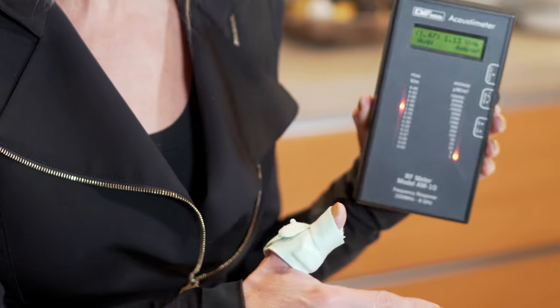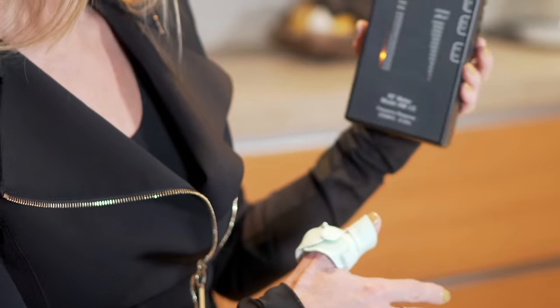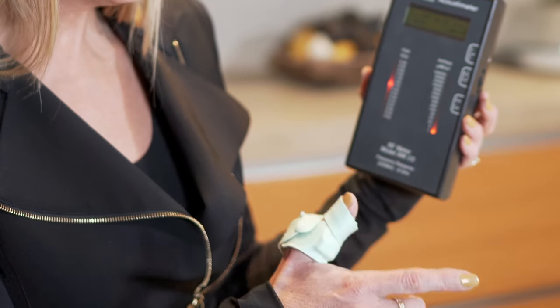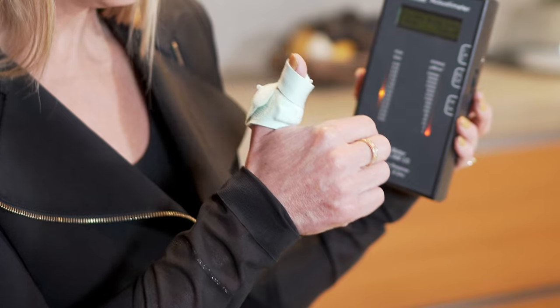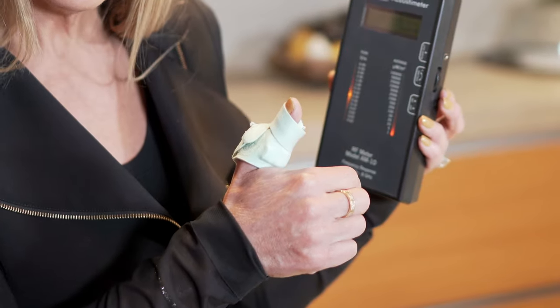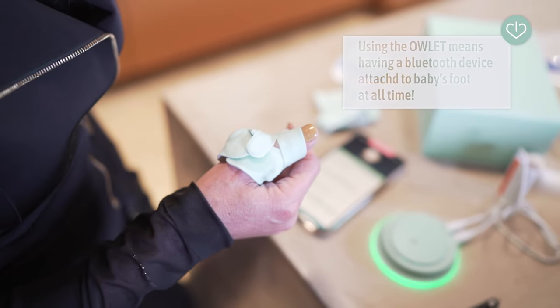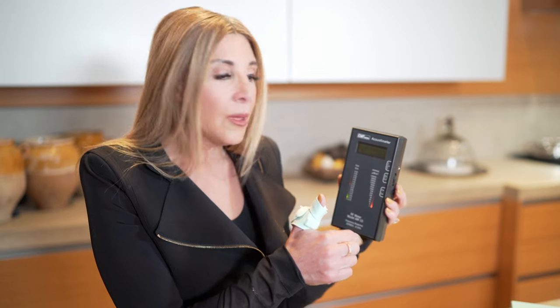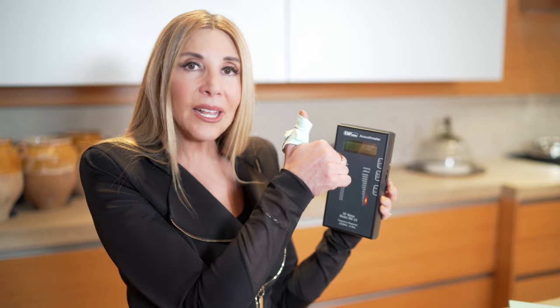If you've got the wi-fi on, you've got both wi-fi radiation and Bluetooth radiation — they're a little bit different even though they're detected by the same meter. I'm much more sensitive to wi-fi radiation, so if you have to use the Owlet and subject your baby directly to that Bluetooth radiation attached to their body, I hope you'll consider at least not adding wi-fi radiation on top of it — just use the base station. Either way, in order to get heart rate and oxygen readings, the Owlet sock powered by that Bluetooth radiation has to be on your baby's foot.